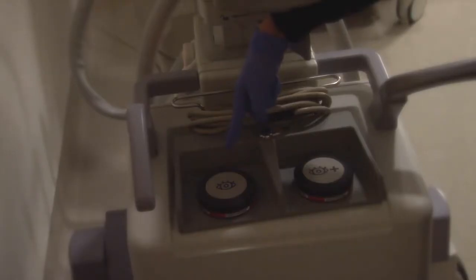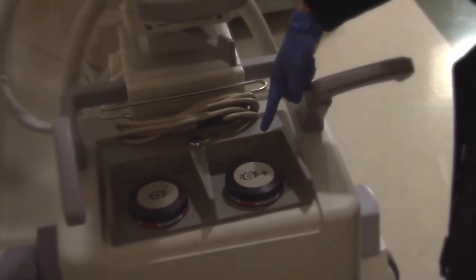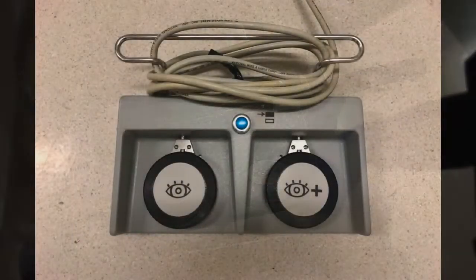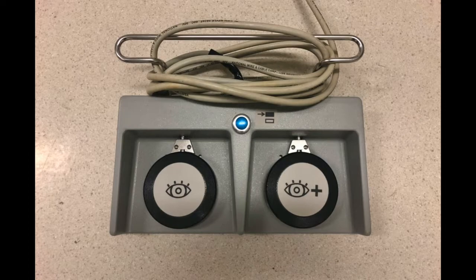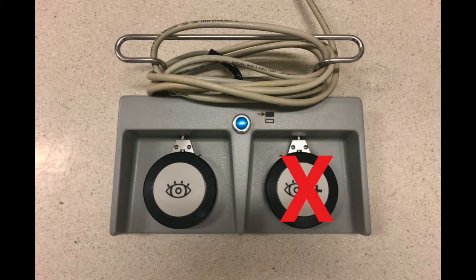Now looking at the pedals, you'll note that one has a plus symbol. This pedal is for boost mode or high dose mode. Boost mode improves image clarity, but drastically increases radiation dose. You typically do not need boost mode for most bronchoscopy procedures.